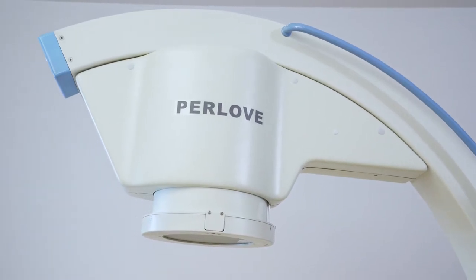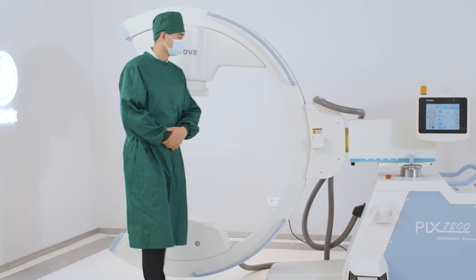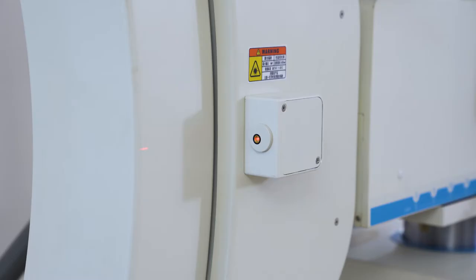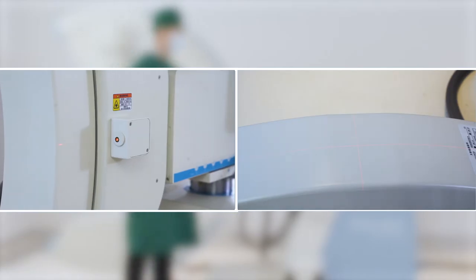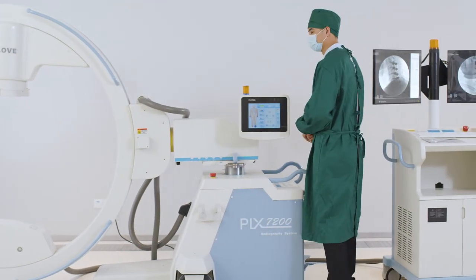With high-quality image intensifier and light cross-positioning function, achieving accurate positioning of checkpoints before surgery, reducing unnecessary exposure.